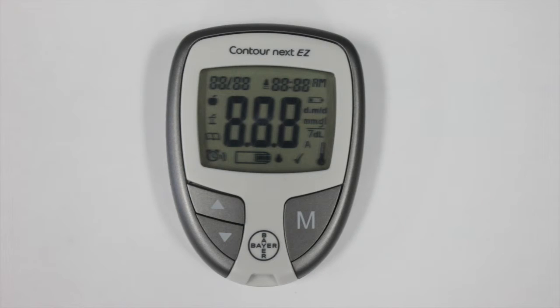When the device is turned on using the M button, this is what is shown to the user to indicate that all parts of the LCD screen are working completely. This shows all of the different possible options that can be displayed on the LCD screen. They're never all displayed like this except when the device is first turned on.